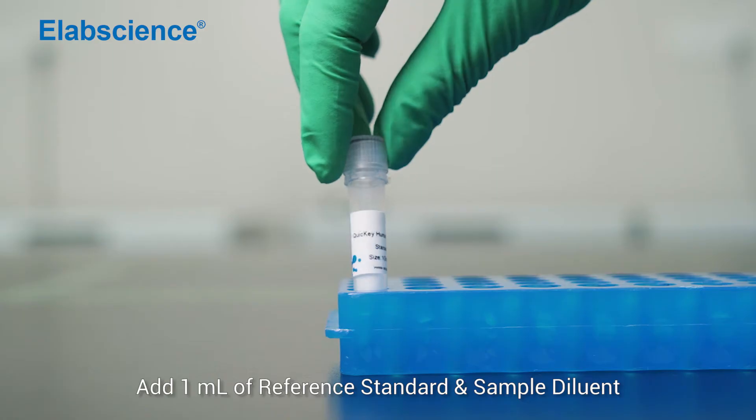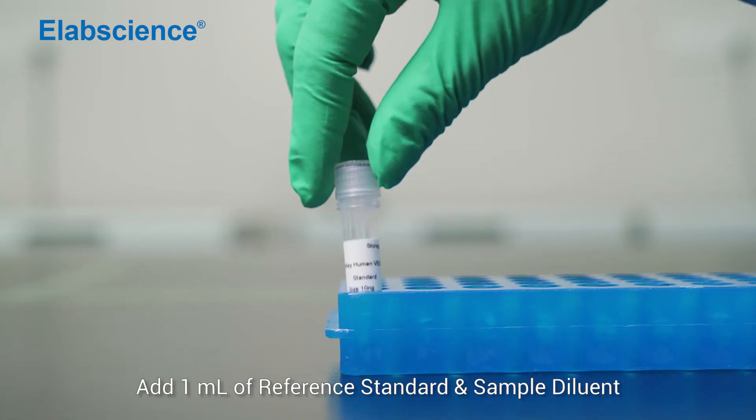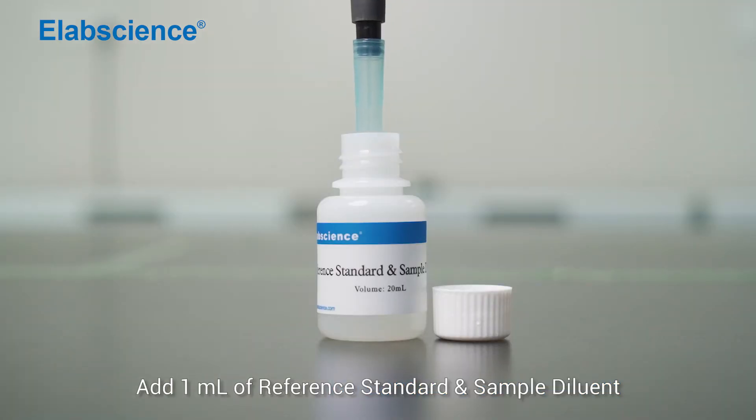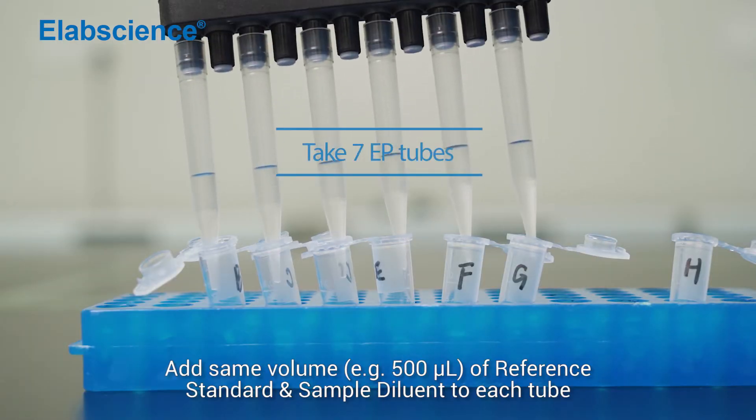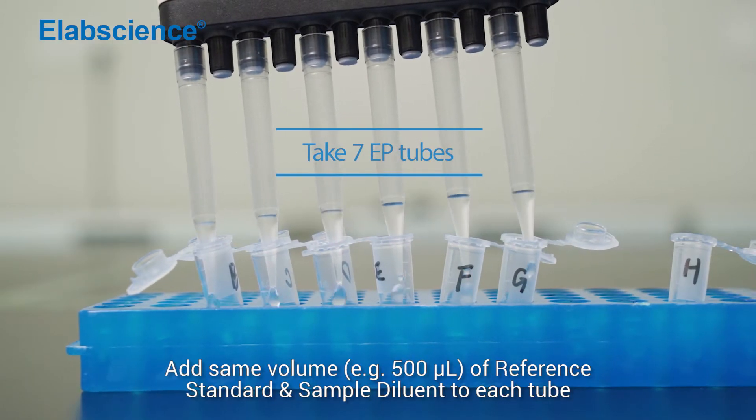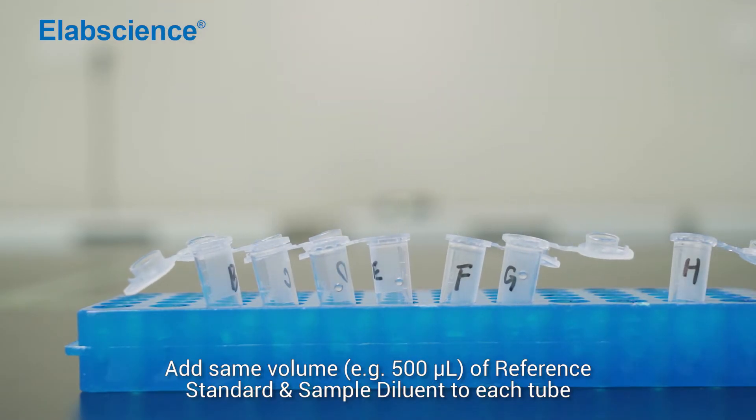Add 1 ml of reference standard and sample diluent. Stand for 1 or 2 minutes. Add the same volume, like 500 µL, of reference standard and sample diluent to each tube.